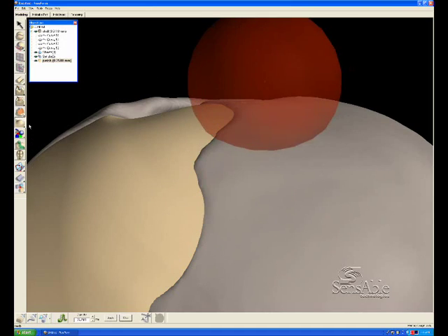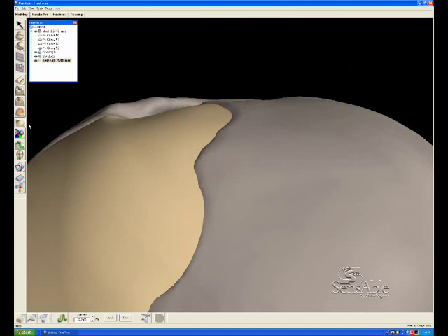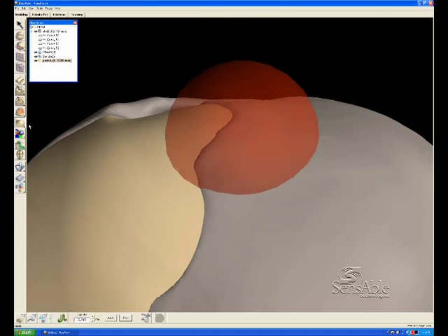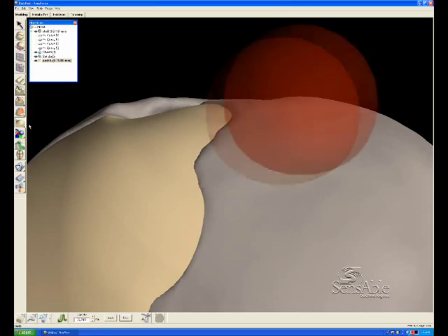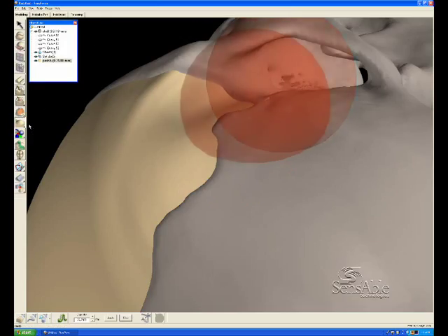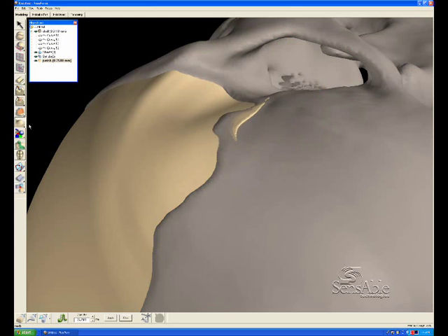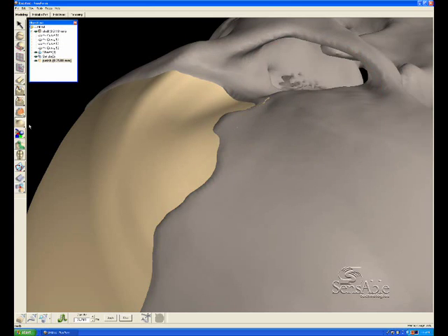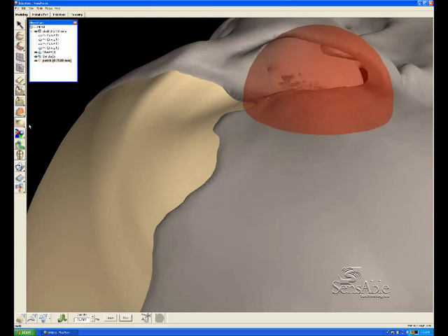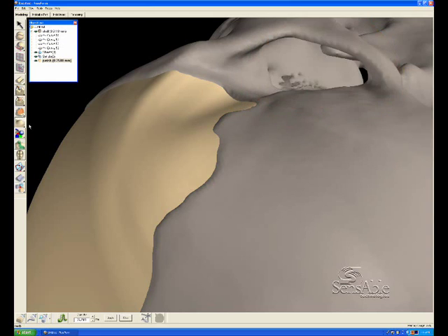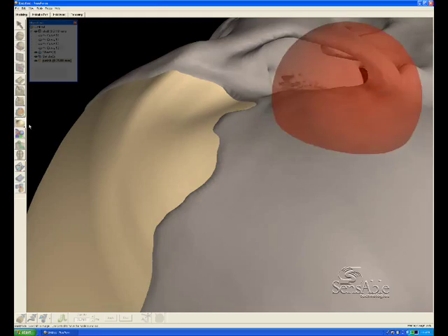Now a lot of time can be spent on this part of the process in order to get a perfectly matched tangency. But we're going to get it decent for the sake of time within this demo. Any little bits that are overhanging like that, we can just pull them down into the surface of the skull.